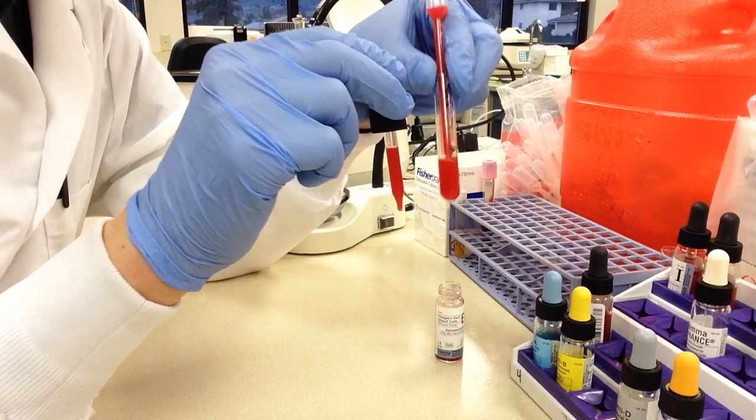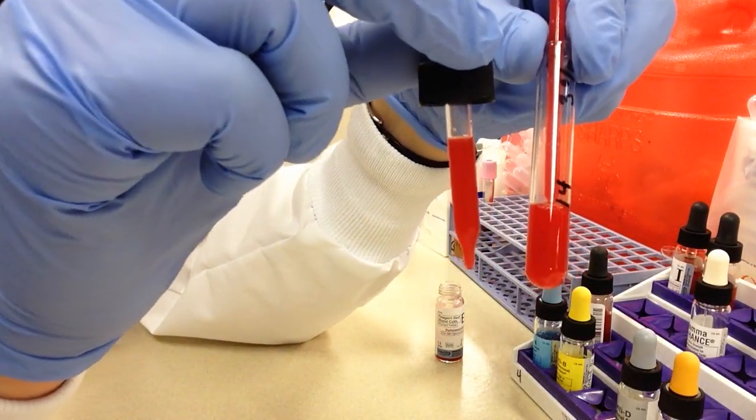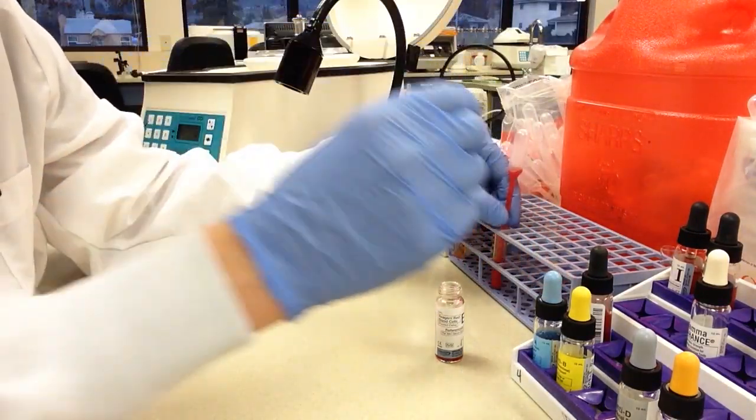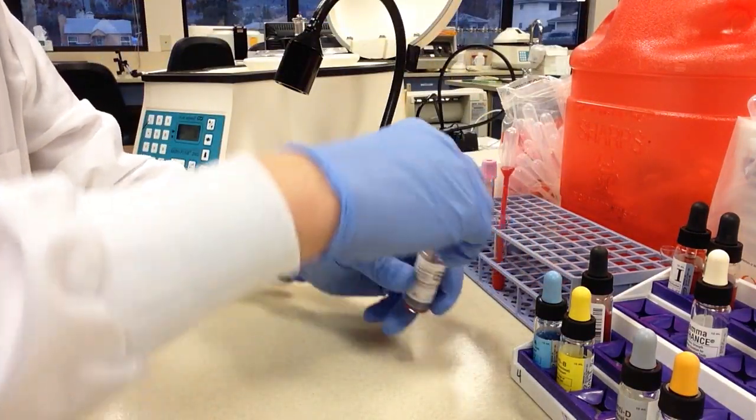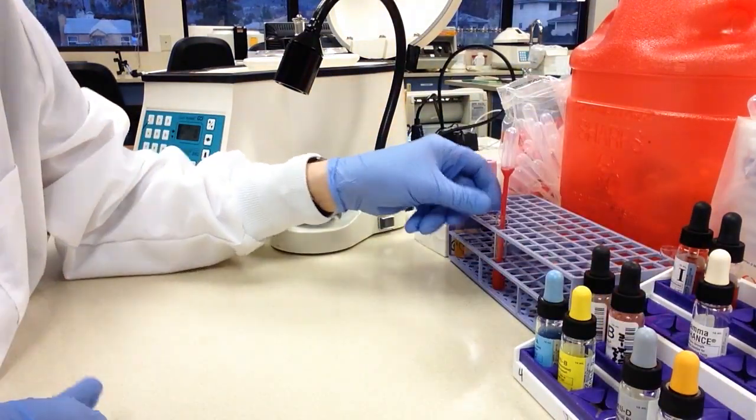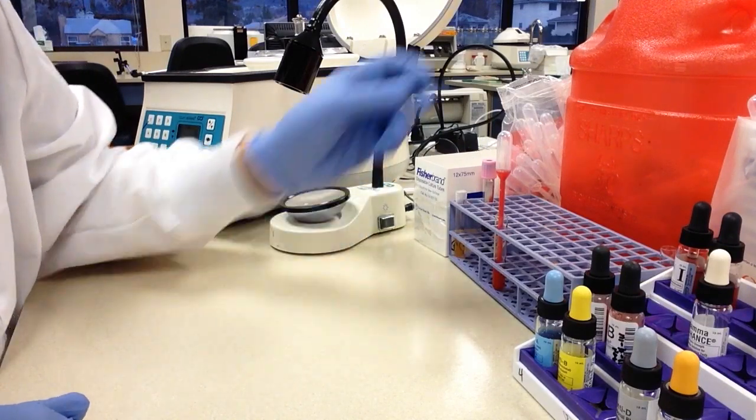Okay, so based on what I see here, they look about right. All right, so at this point, you've gone ahead and made up your 3% cell suspension. Those cells are ready to use for testing.